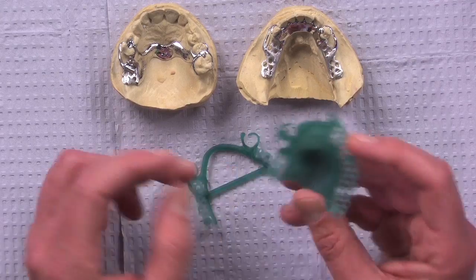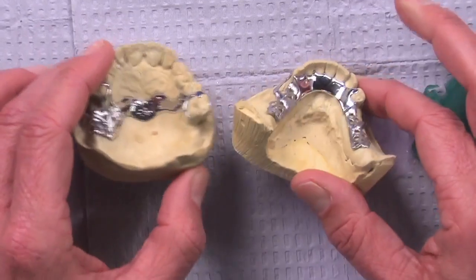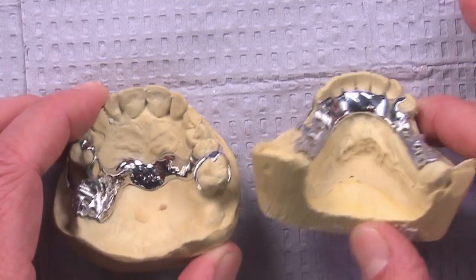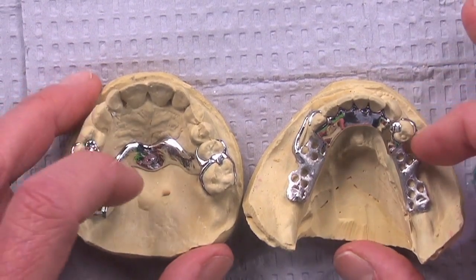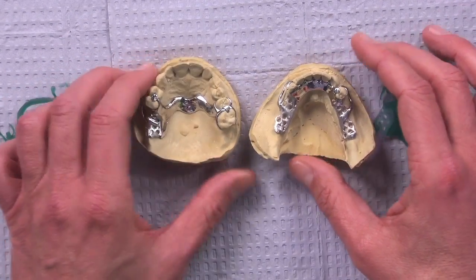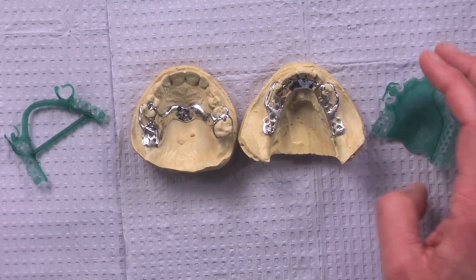And what they notice is when they print these in resin and then invest and burn them out and then cast it, they're really getting some nice dense castings. And so they fit great, and these CAD-CAM partials have a very low return rate back to the laboratory. They just seem to be very dimensionally stable and fit better than the regular waxed ones. So they polish nicely, and they're very nice and dense and dimensionally stable. And there's only certain cases still where we can do it, but those indications continue to expand.